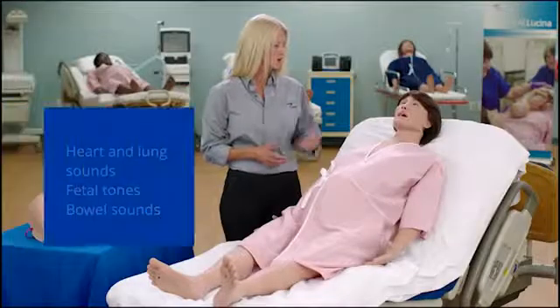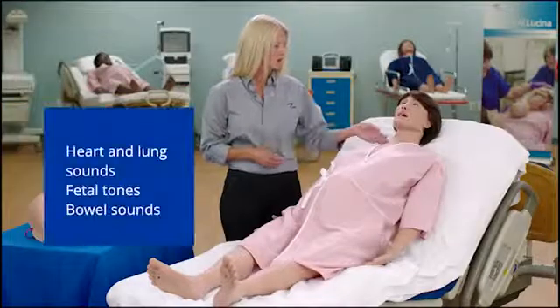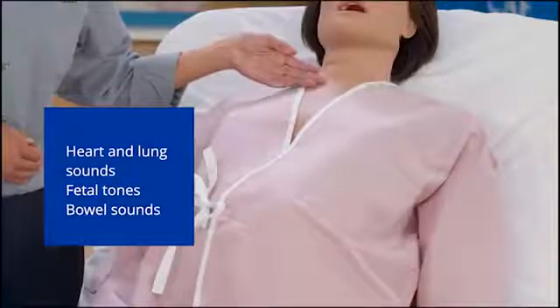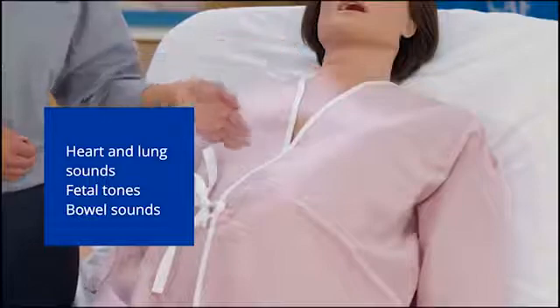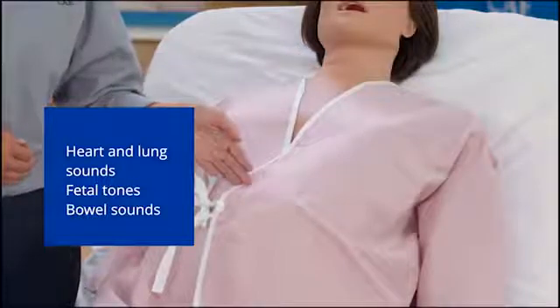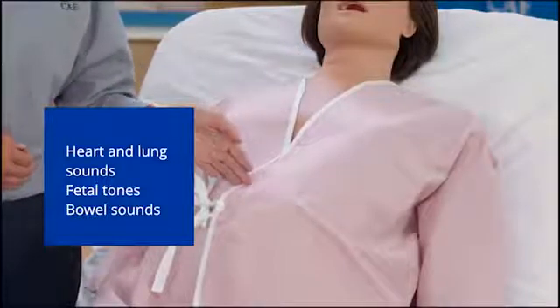Learners can auscultate heart, anterior and posterior lung sounds, as well as fetal tones or bowel sounds.